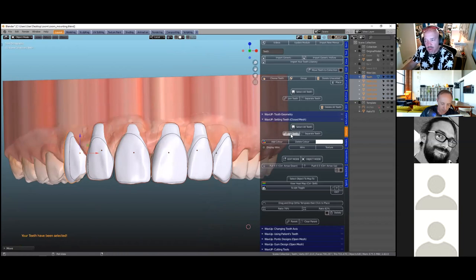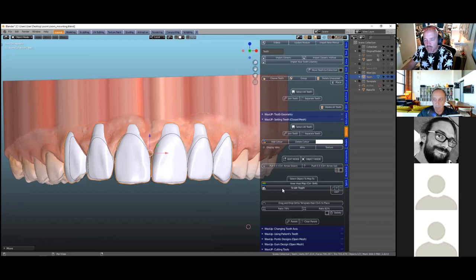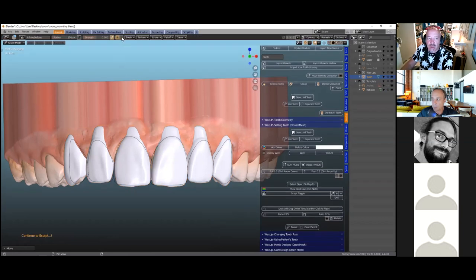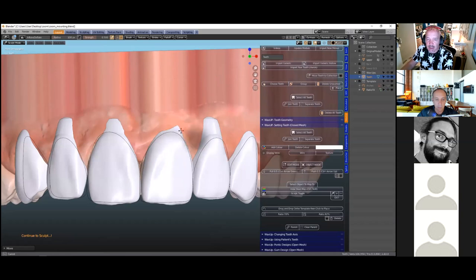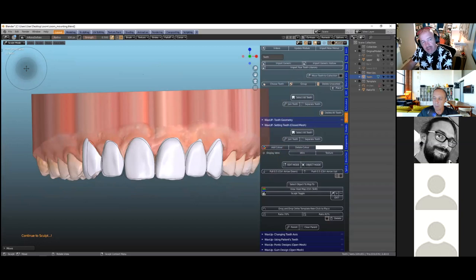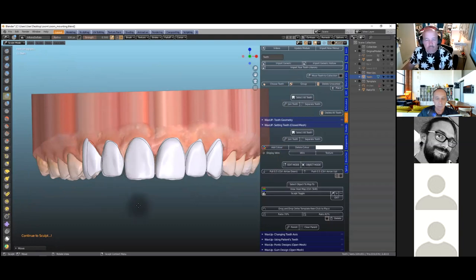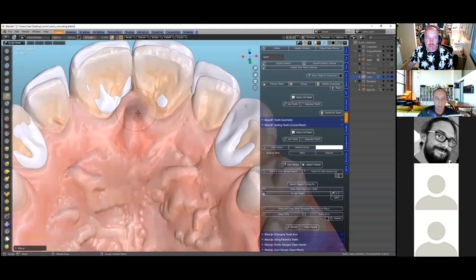Let's select all the teeth and push the gums back. I've selected all teeth and I'm going to join them so I can work on all teeth in one go. Then we go to 'sculpt' and we can push those necks in. When you push in, you're pushing the mesh into the underlying model — the mesh disappears because you're pushing it in. In Blender this is called 'inflate' — in this case it's negative inflate, pushing it into the gum.